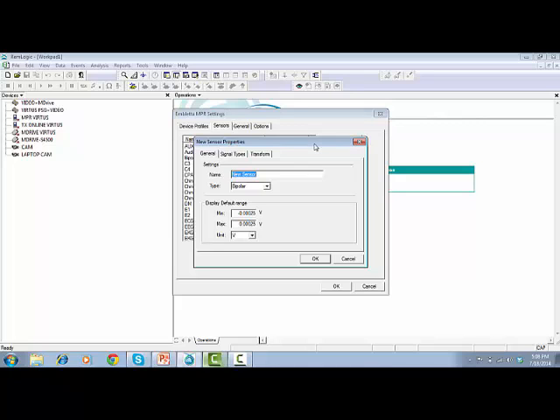If you want to add a new third-party sensor, please consider the sensor technical specifications for detailed sensor information which you might need to fill in. On tab General, type the sensor name.